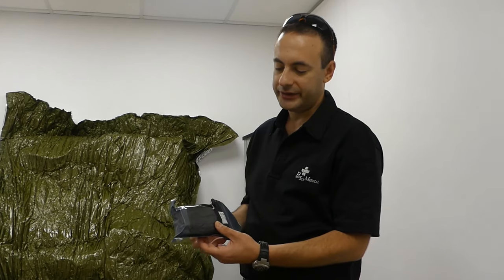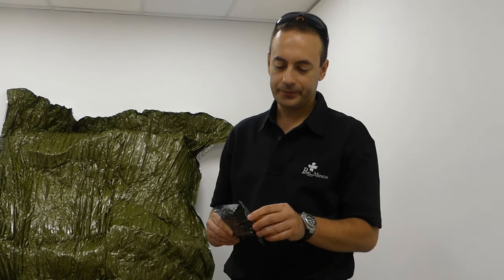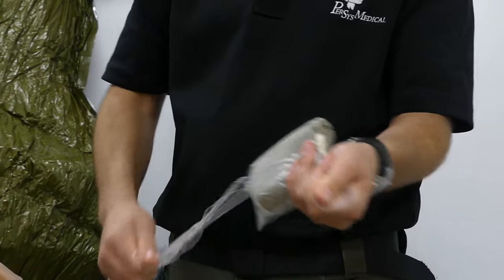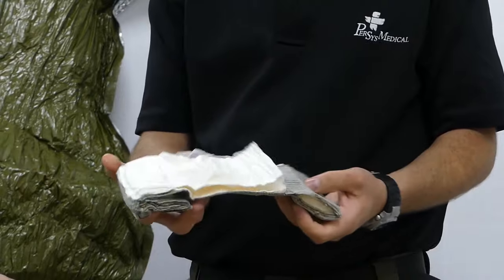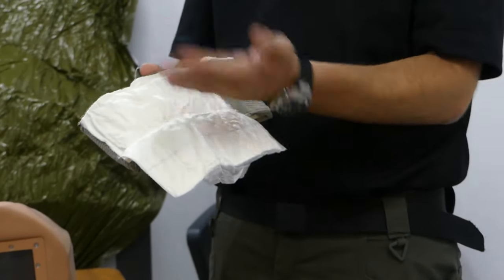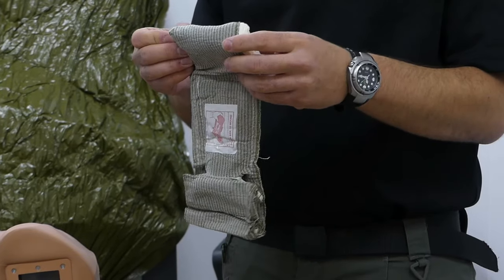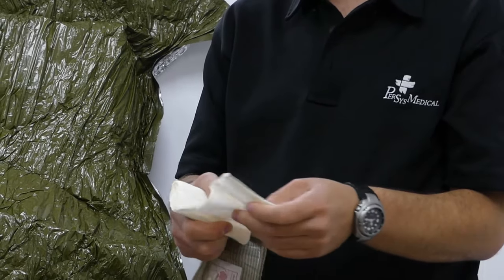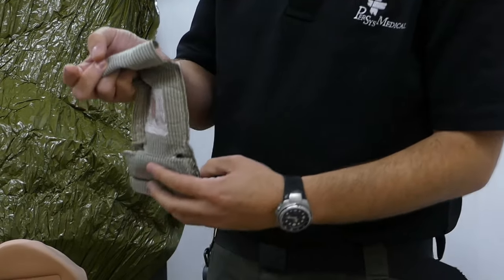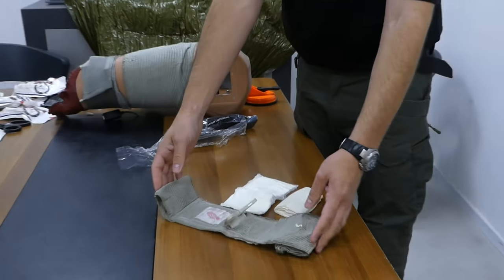What we have here is the T3 bandage, which is the next generation of the four-inch Israeli bandage. It comes in a standard double-sealed package. Inside it has a detachable pad which expands to double in size and can be detached for use on another wound. In the self-application sleeve, there is a hidden additional bandage that can be used for either wound packing or bandaging another non-significant wound. At the end of the day you're left with a standard-issue Israeli bandage. Basically it's a hemorrhage control kit — two-in-one.